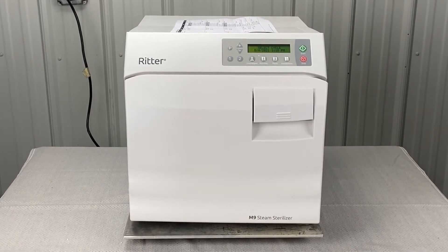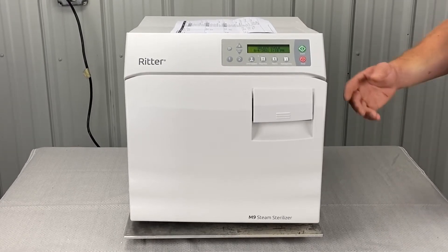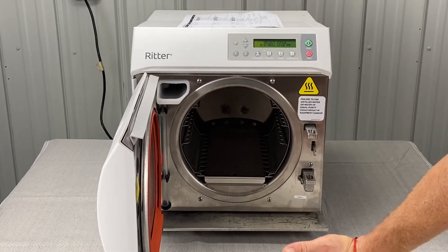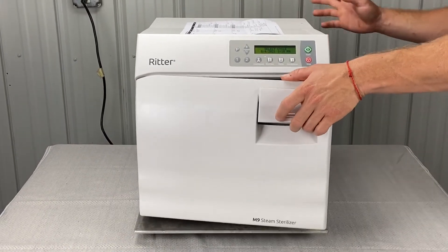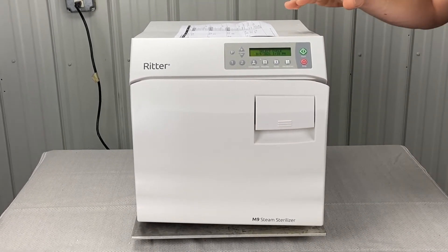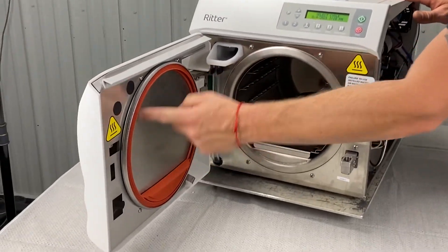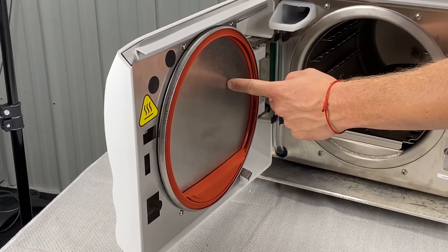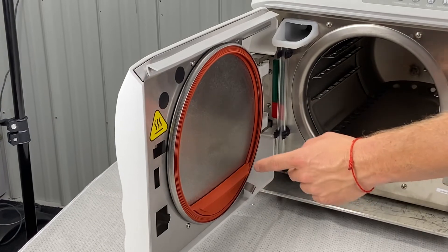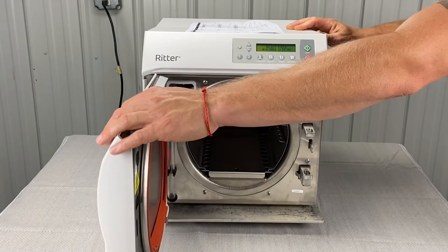That's quite a bit of time, so it's obviously been leaking this whole time. It could be the door gaskets leaking, the dam gaskets leaking, or any number of valves — the pressure valve, vent valve, or solenoid valve. You have to do maintenance regularly and replace these often. The manufacturer says a year, but honestly they don't last that long. I'd always have a backup — recommended quarterly, based on how often you're using your sterilizer.